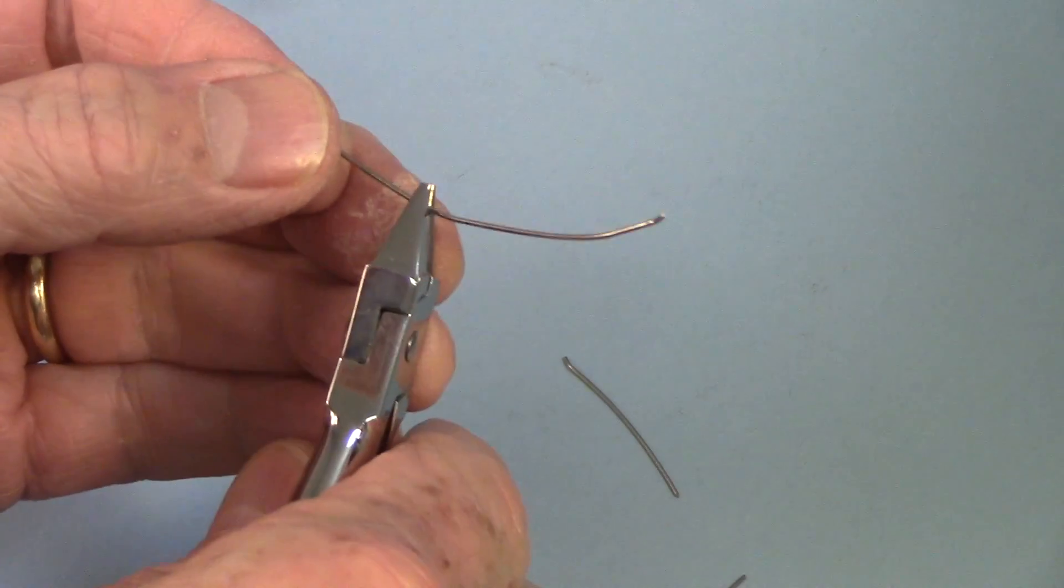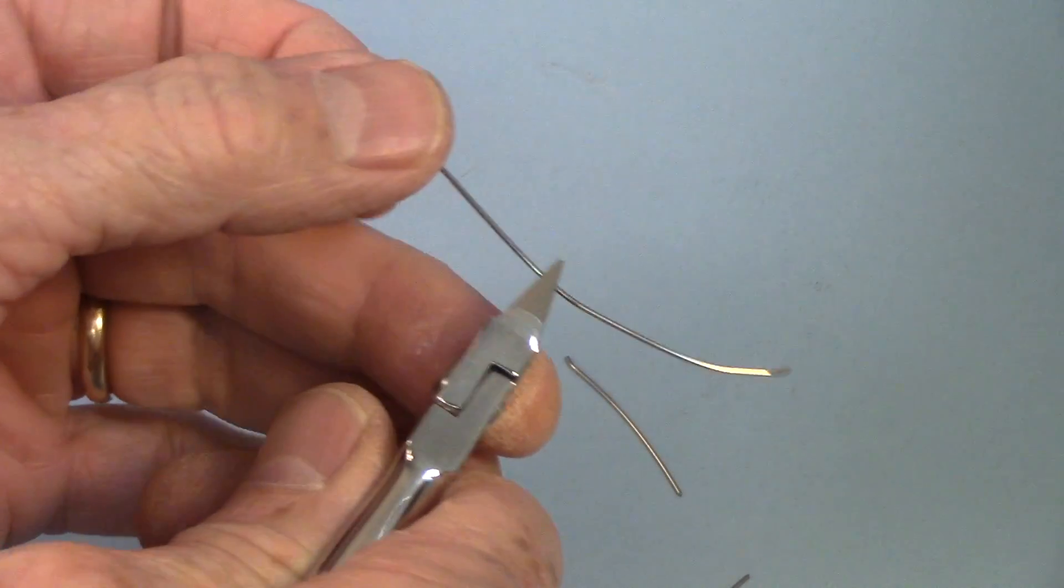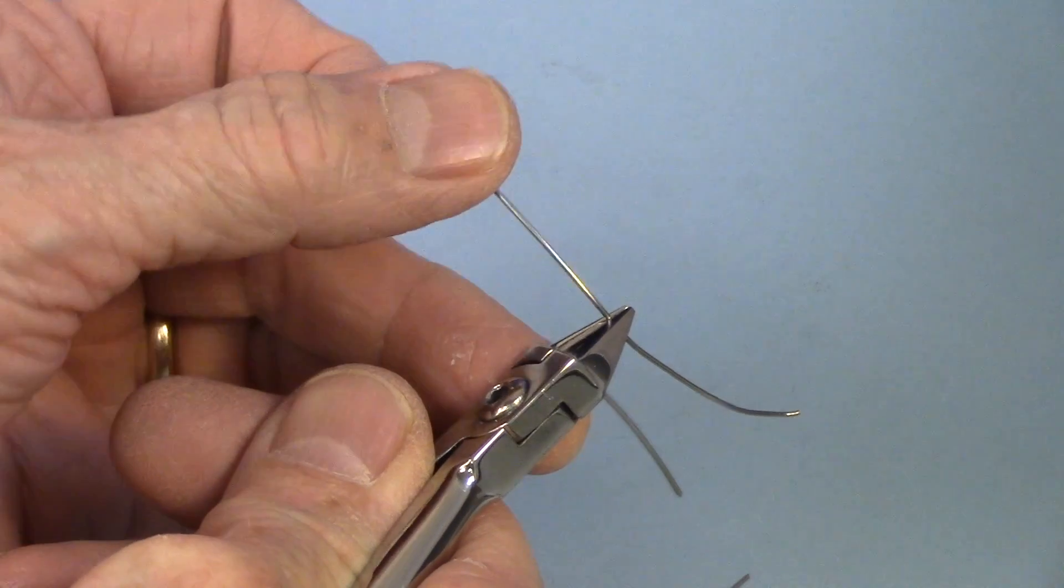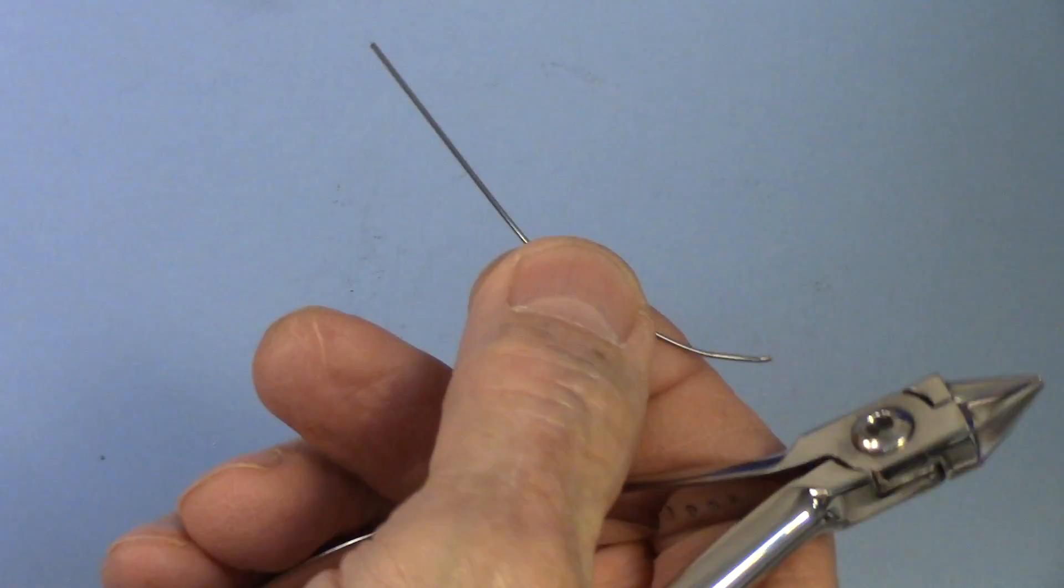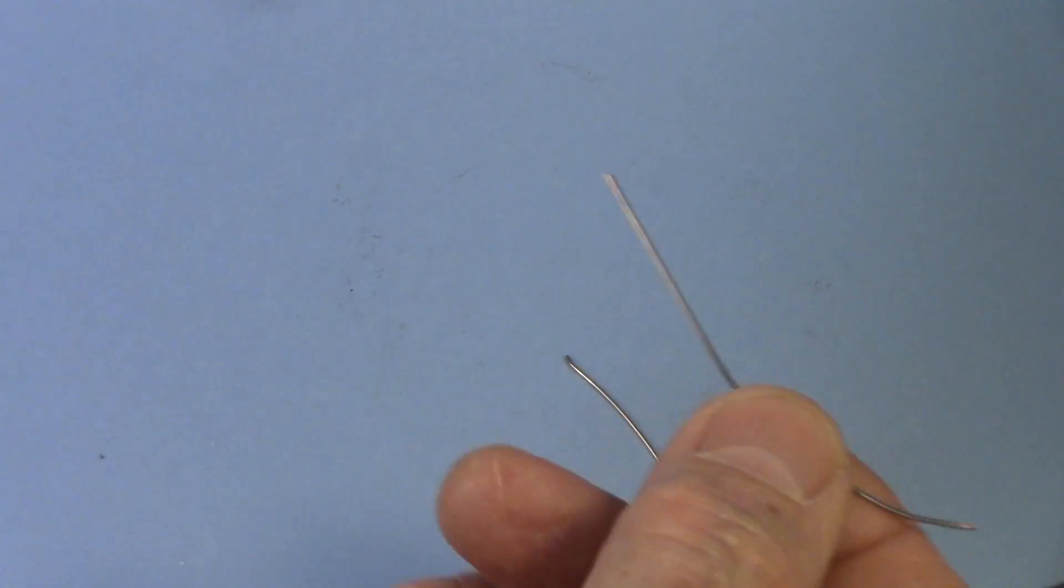Even though this is the softest nickel-chromium wire that I have, it still has more elasticity than the cobalt alloy wire. So what does all that mean?